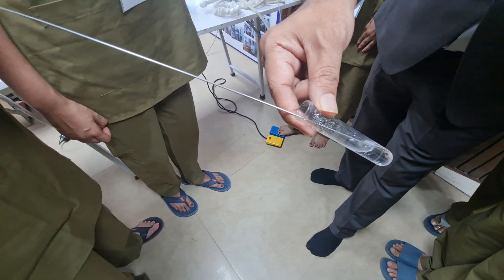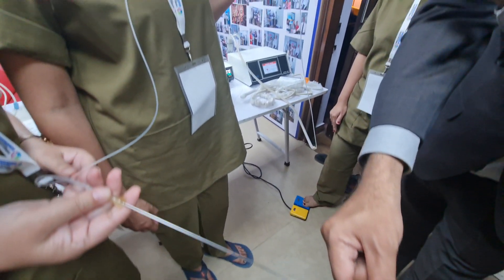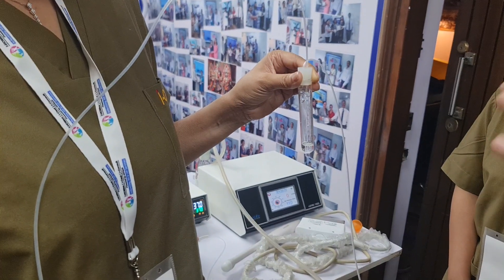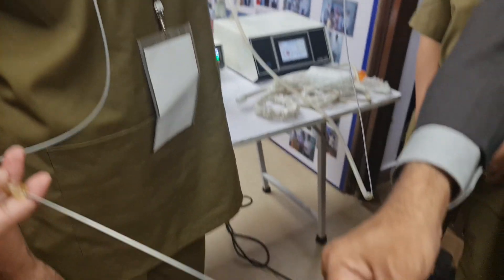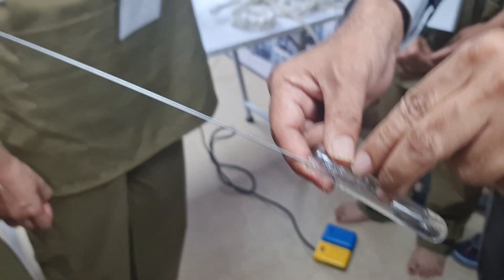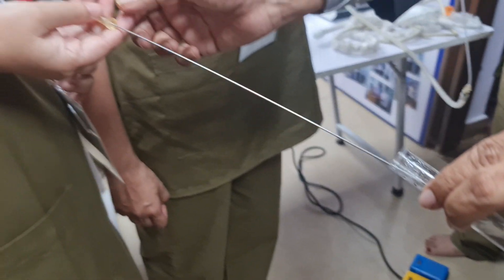Press the button and wait for the fluid to come — there it's coming. Stop now. This is the dead space. Every dead space is around 2ml approximately. Now what has happened is the dead space has been cleared — I have stopped now.